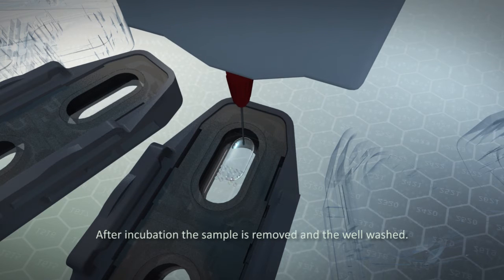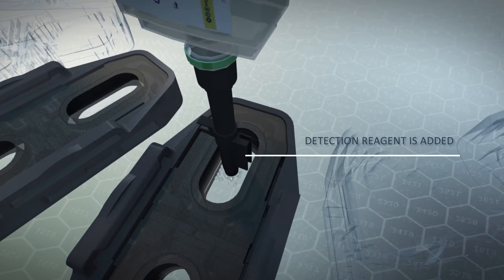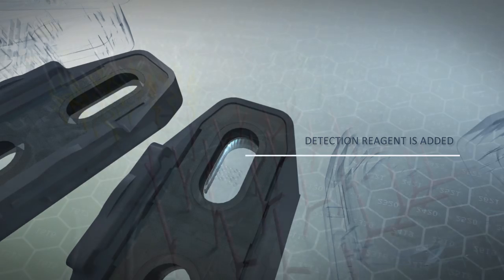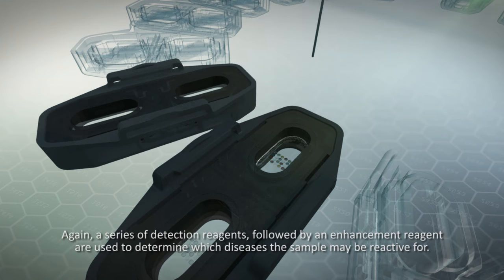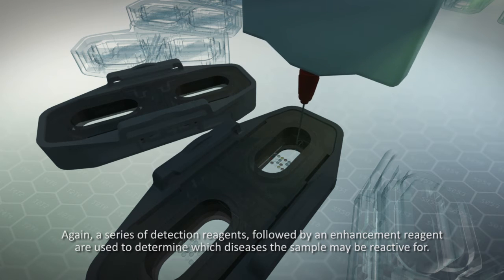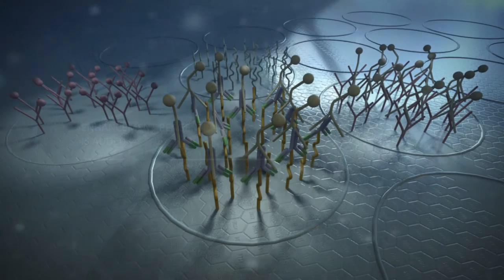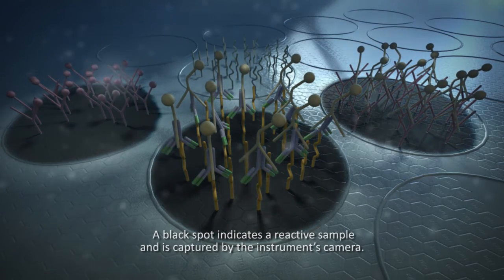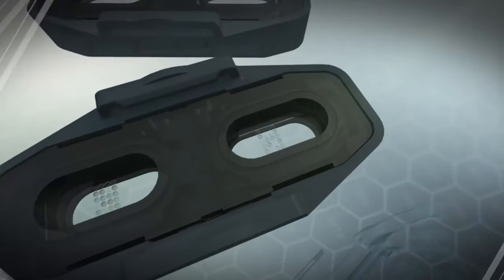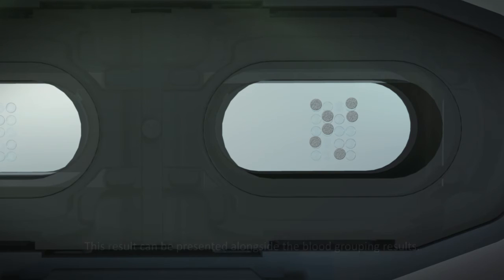After incubation, the sample is removed and the well washed. Again, a series of detection reagents, followed by an enhancement reagent, are used to determine which diseases the sample may be reactive for. A black spot indicates a reactive sample and is captured by the instrument's camera. This result can be presented alongside the blood grouping results.